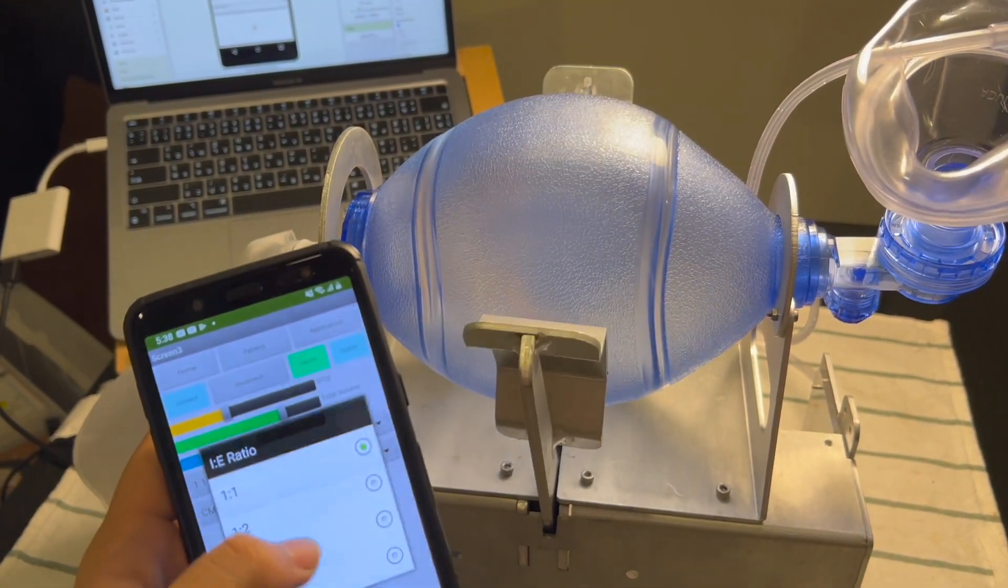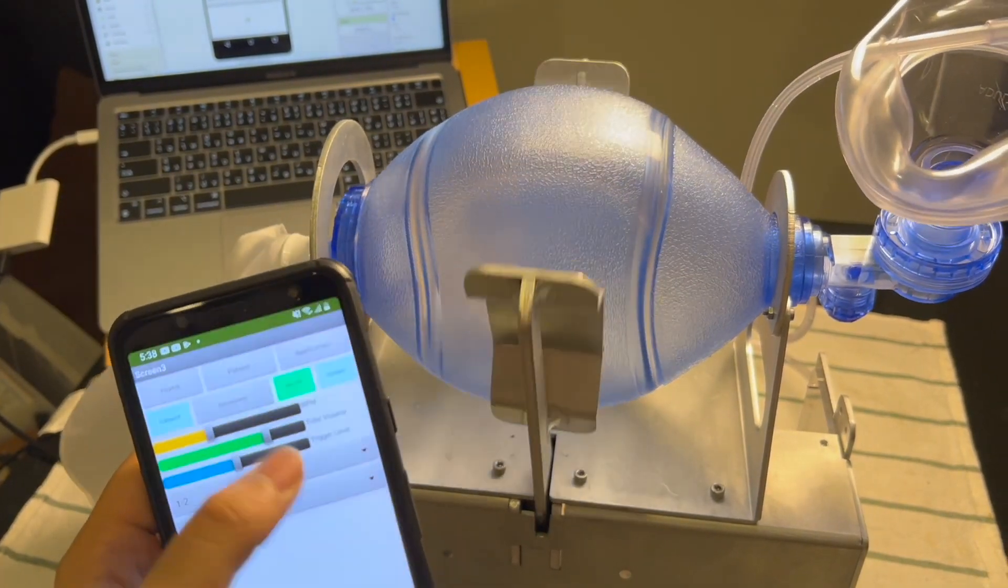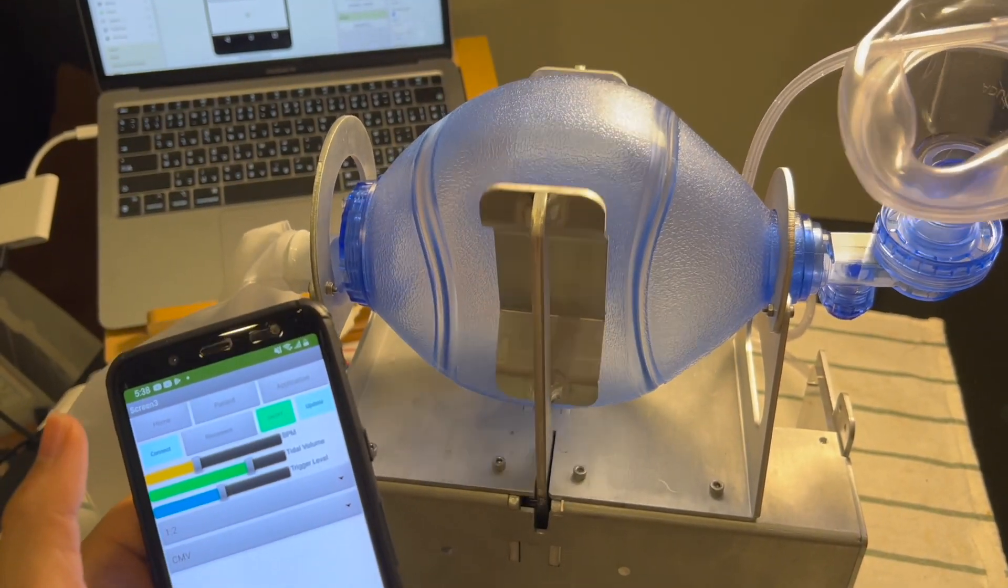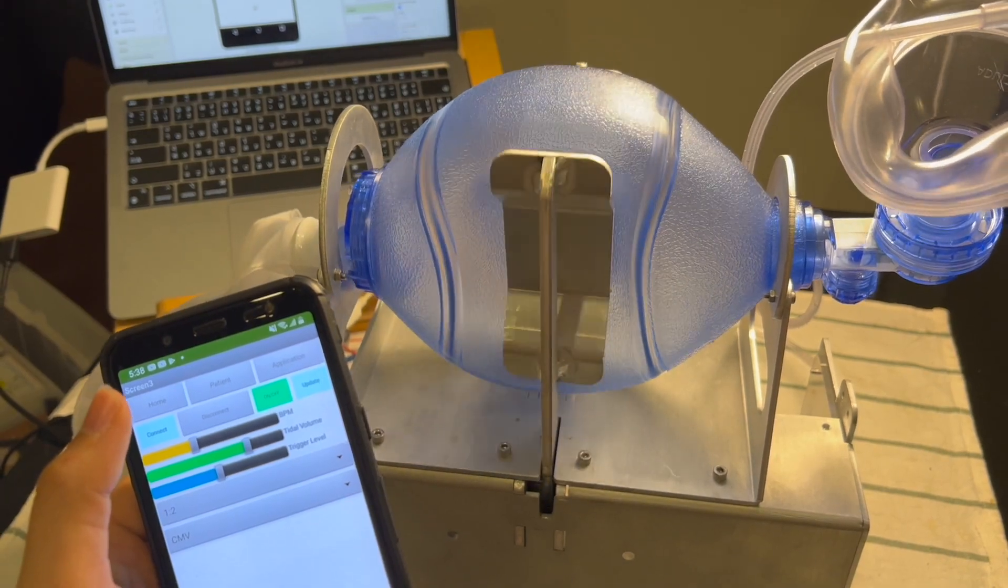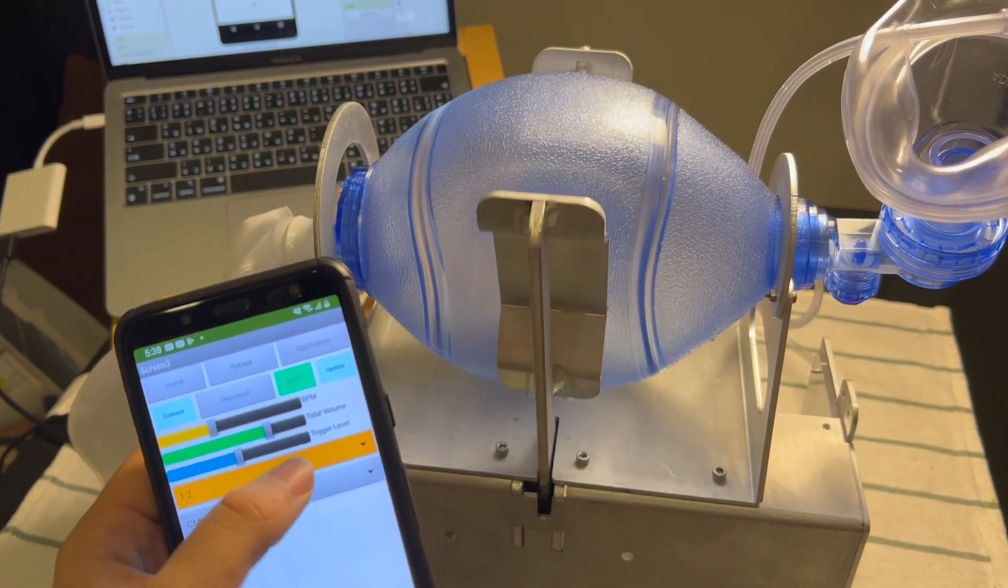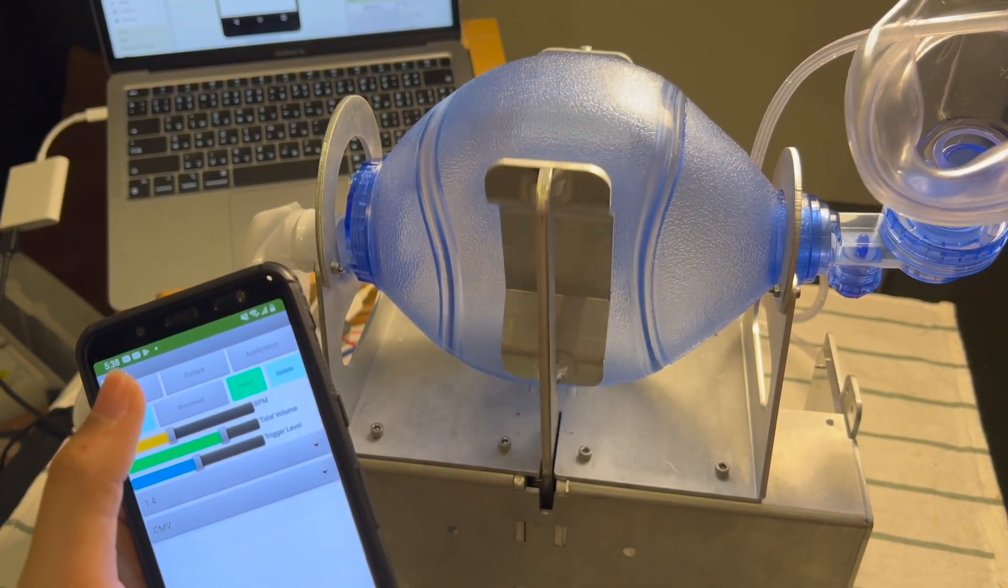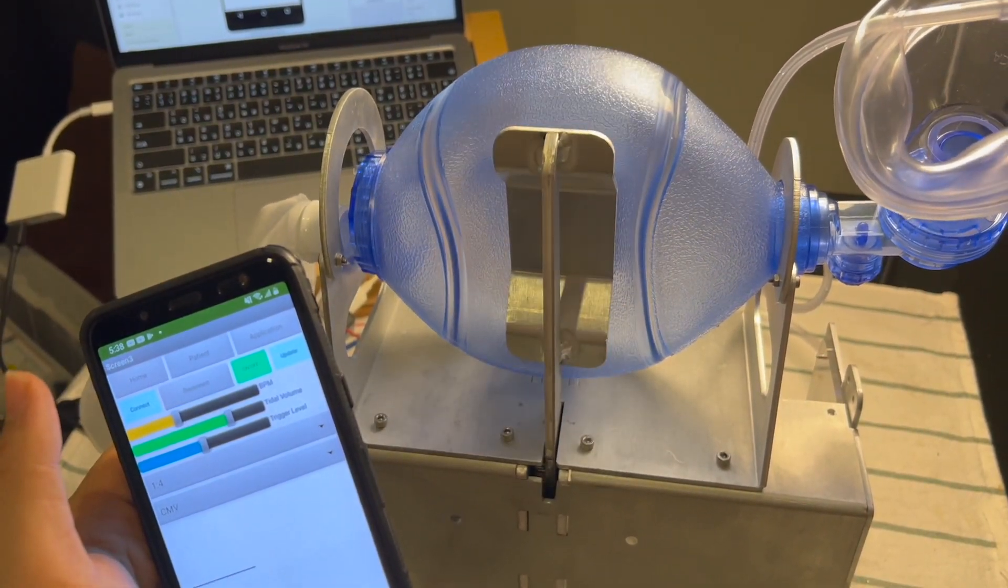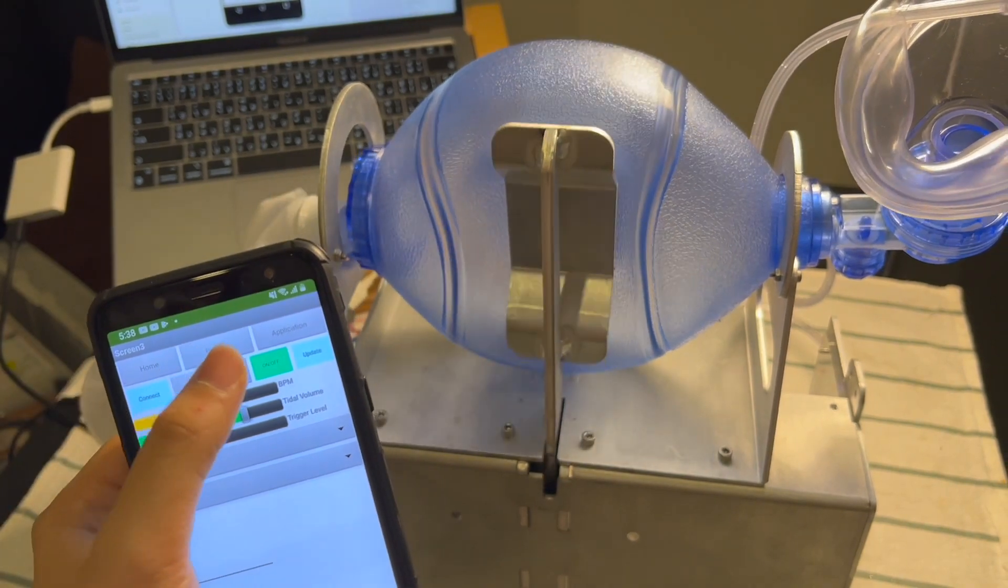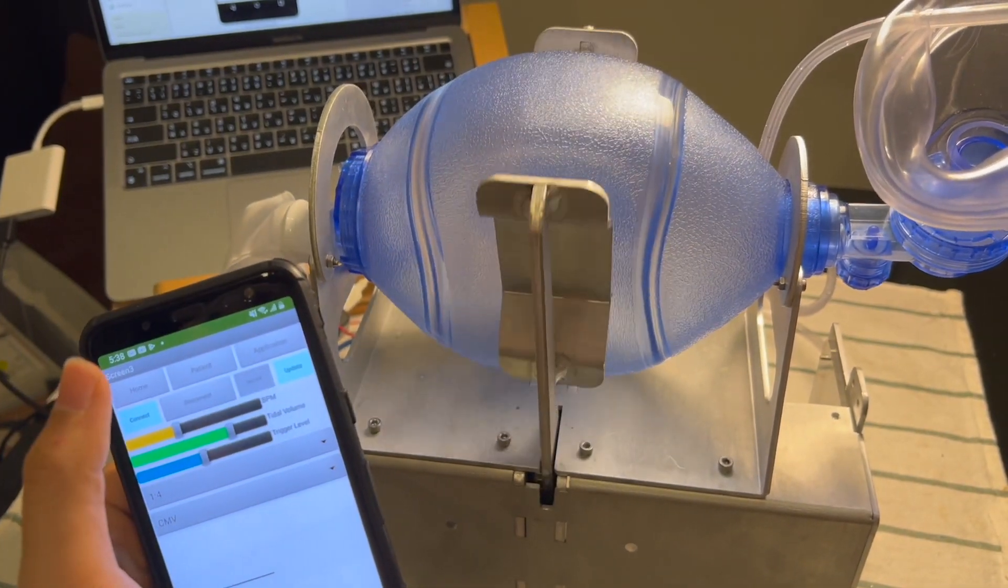You see? We can adjust the rate. We can adjust the volume of the ventilator.